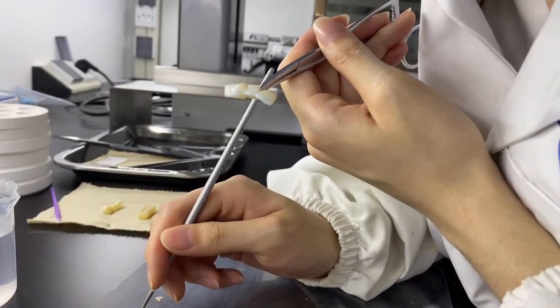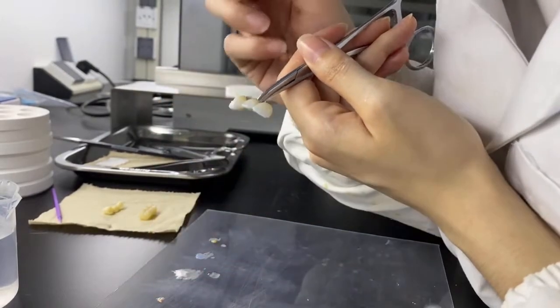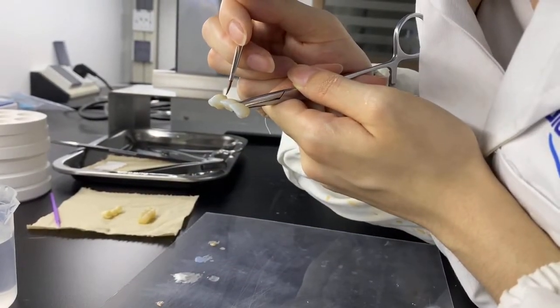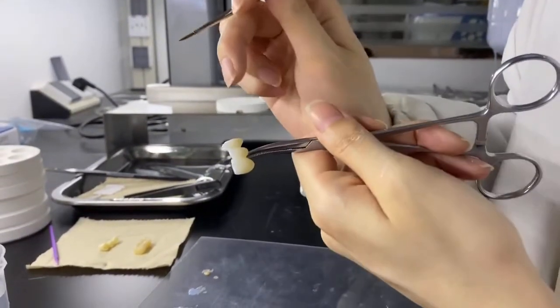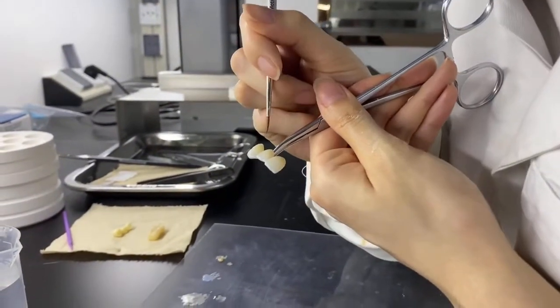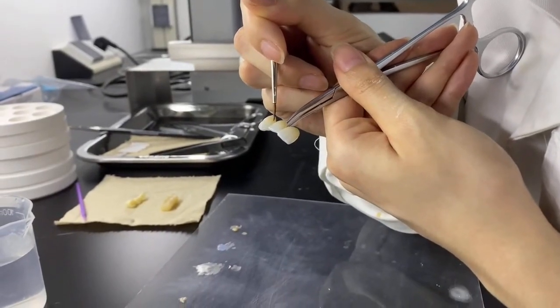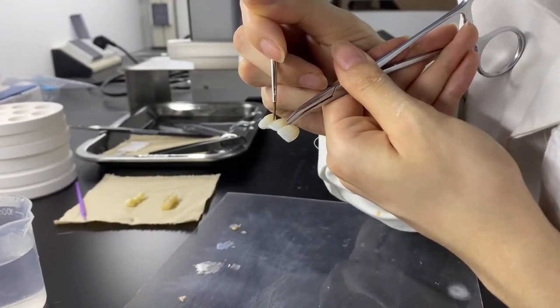3D Pro multi-layer zirconia is fabricated to reproduce the translucency of the natural tooth, which is very important as it provides an enhanced natural appearance of the prosthetics.